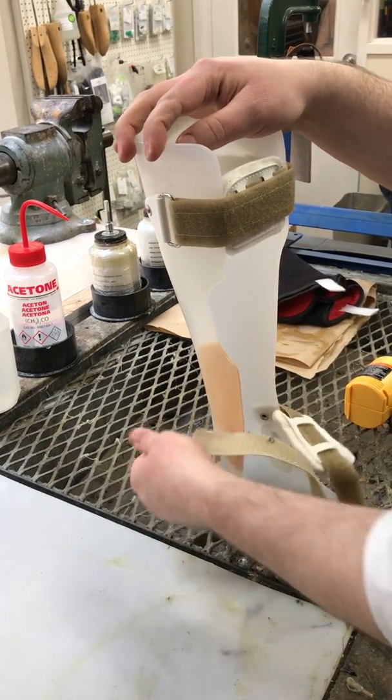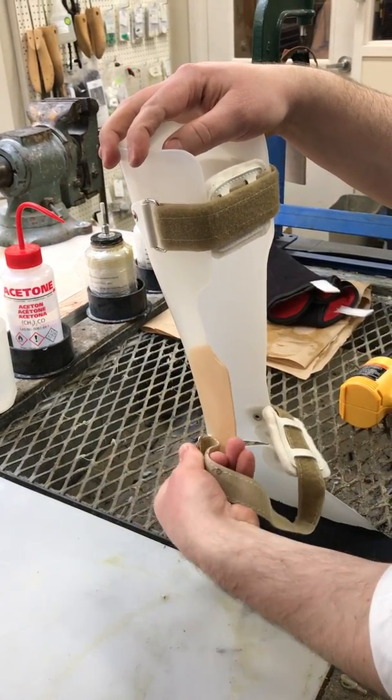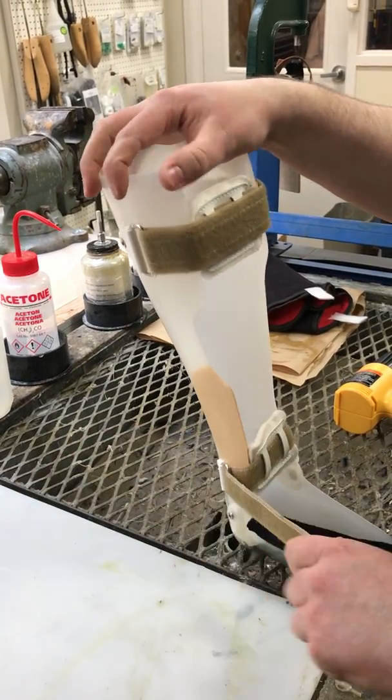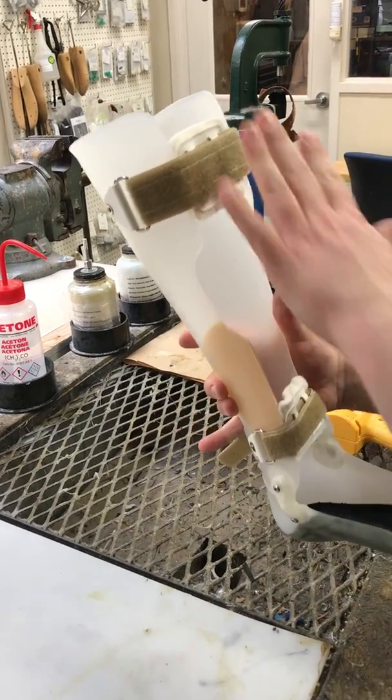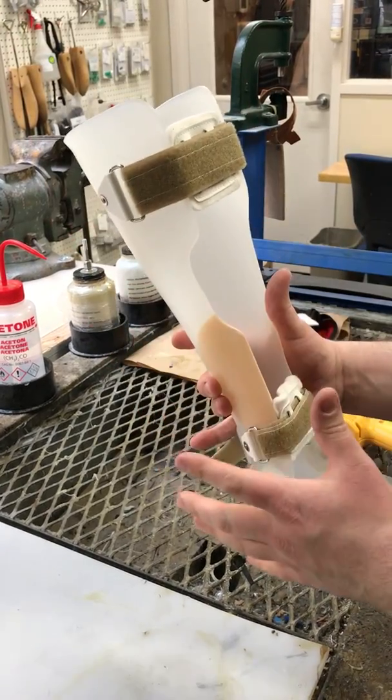You will do this on both the top and bottom straps, or maybe you only have a top strap, but once you get that dimension to where you need it and mark it, you just leave the velcro tightened to where you need it.